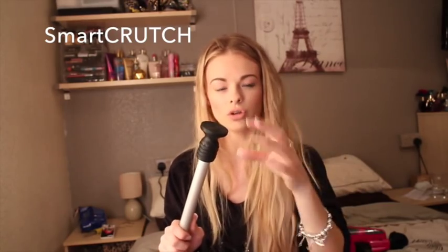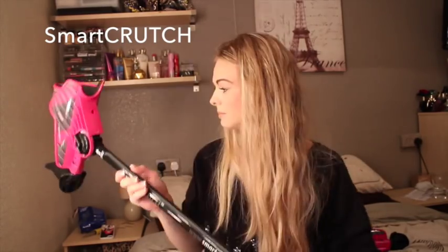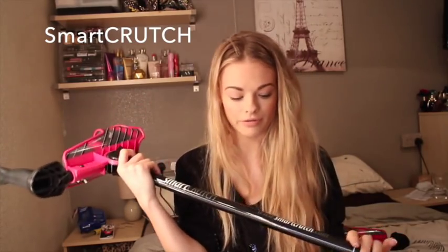One of my favourite things is the end. It's really nice, round, and flat — quite large. It moves, so when it's on a flat surface it bends. It works better when my body weight's on it and it's on the floor. It's not totally anti-slip, but it is more slip-resistant than any other crutches, because it covers more surface of the ground and it's flexible. You can put more weight on them and not have to worry about it slipping.